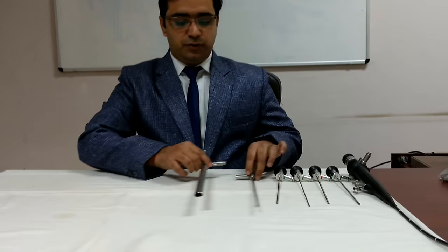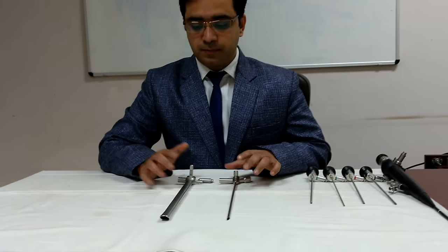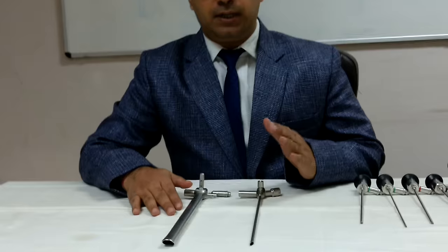After completing few instruments, this video we are posting to finish few scopes used in ENT. First, we should have a look at these two scopes. One is esophagoscope, other is bronchoscope.